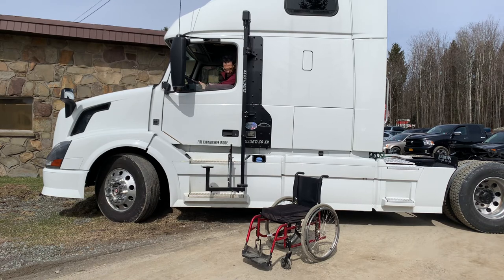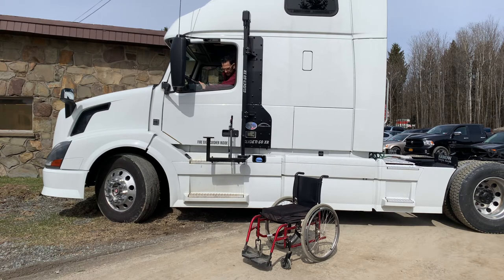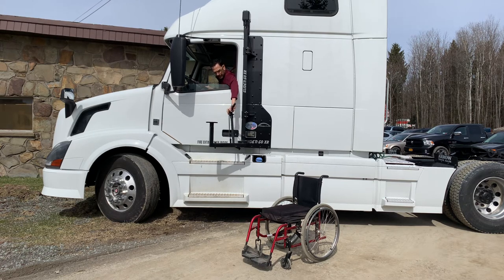Go down until this is going to clear the handle, and you can bring it up. You can also roll the window down and move it out of the way. If you've got long enough arms, you can bring it back just like that — depending on the level of disability and whether you're a quadriplegic or a paraplegic. But there are lots of different options for quads and paras to be able to use this product to get yourself mobile.